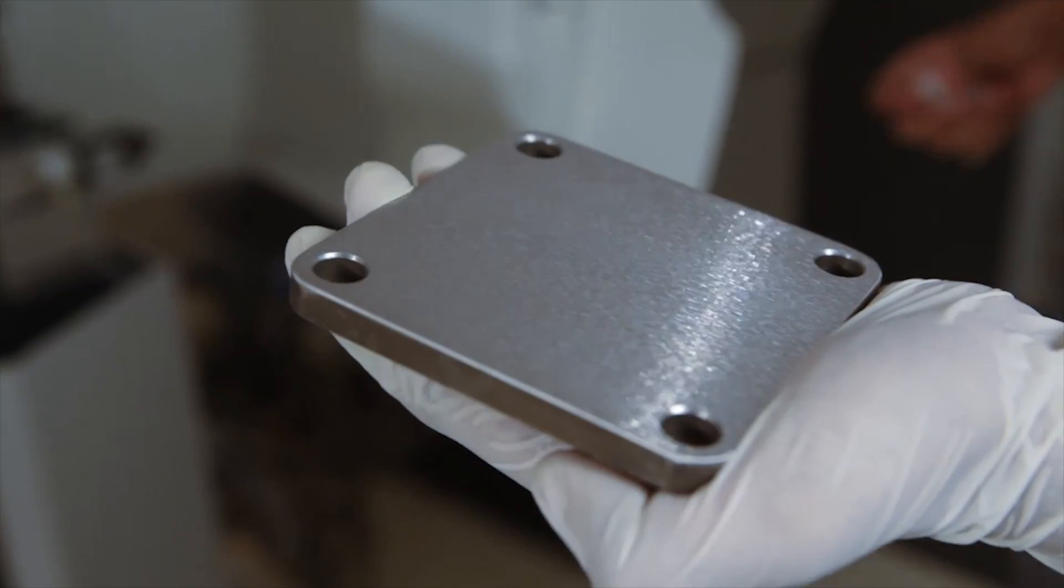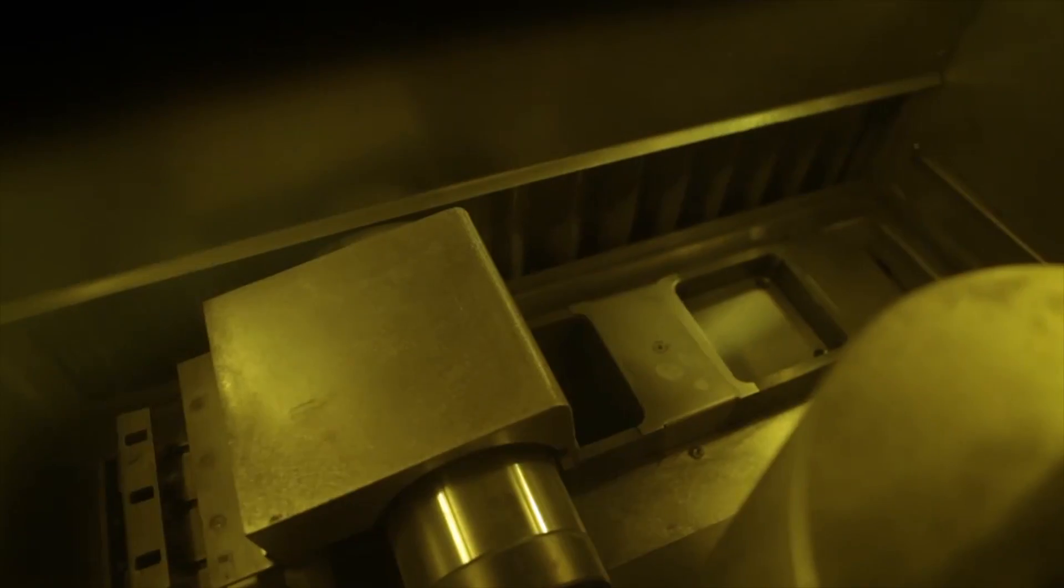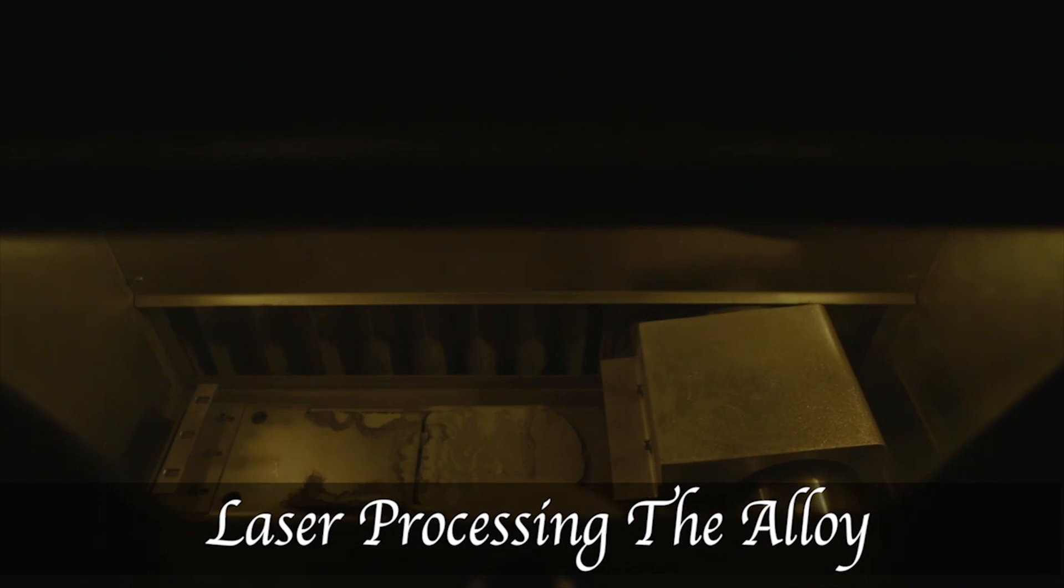This is what we call the DMLS plate where all the frameworks are retrieved. The machine utilizes the purest form of chrome cobalt powder for the sintering in an isolated environment in presence of nitrogen gas.